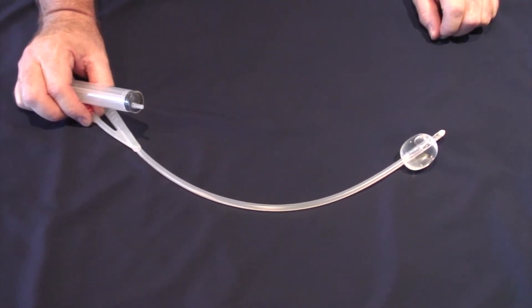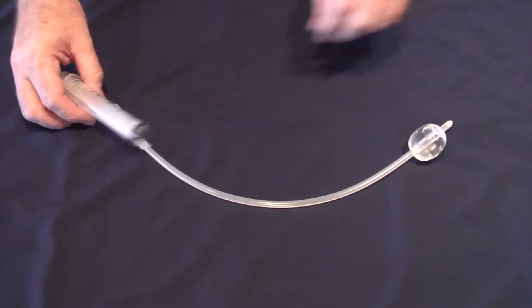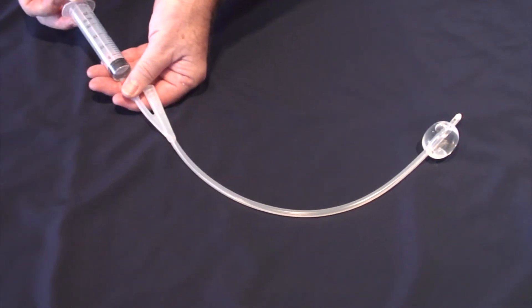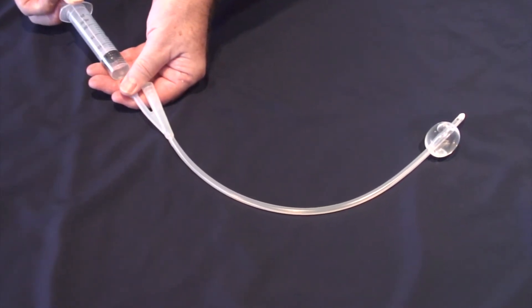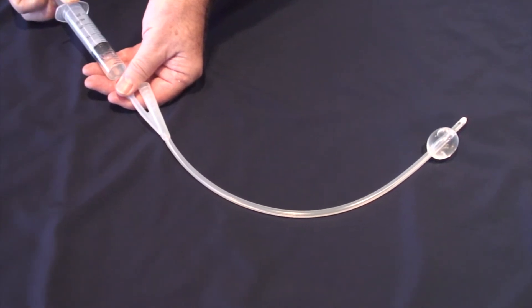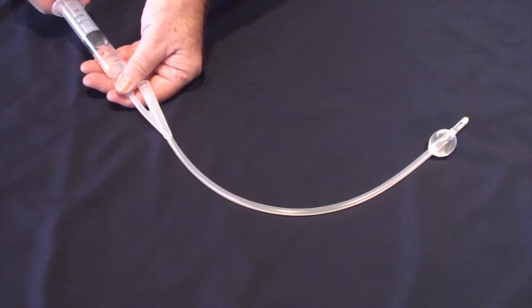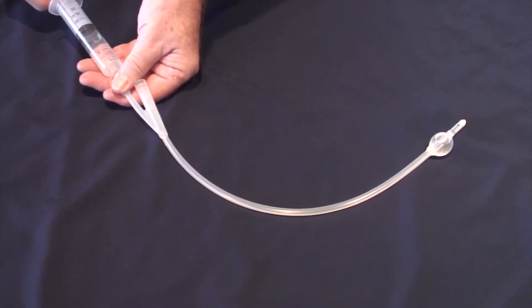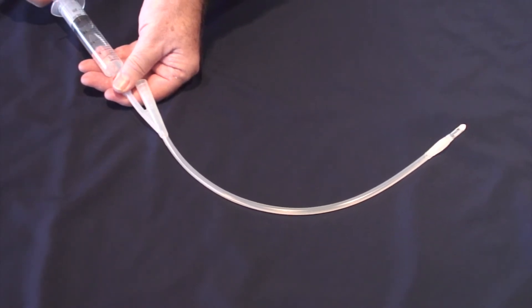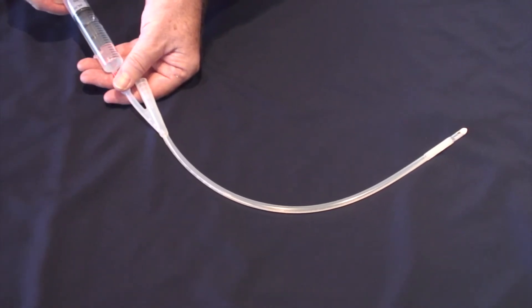Water is the only thing that should be used to inflate the balloon. Other products have a tendency to deflate too quickly, such as air. Saline may crystallise within the tubing and prevent deflation when catheter removal occurs. There is no need to inflate and deflate a catheter balloon prior to insertion to test the balloon in modern catheters.